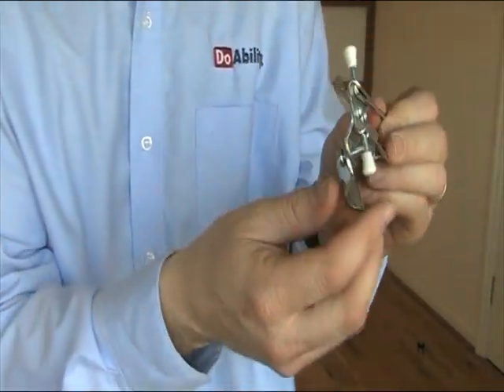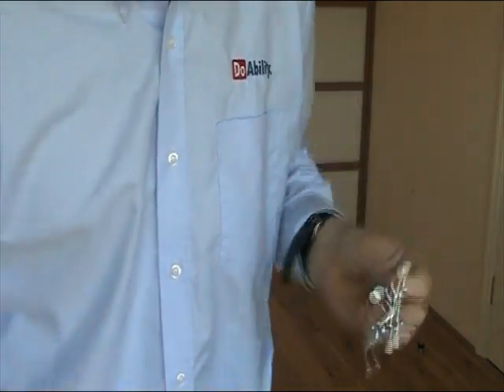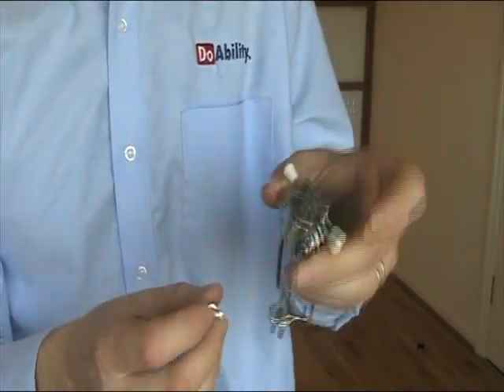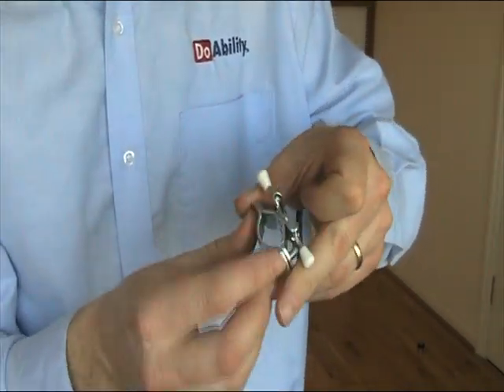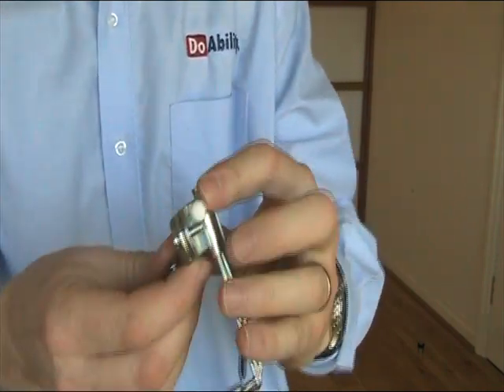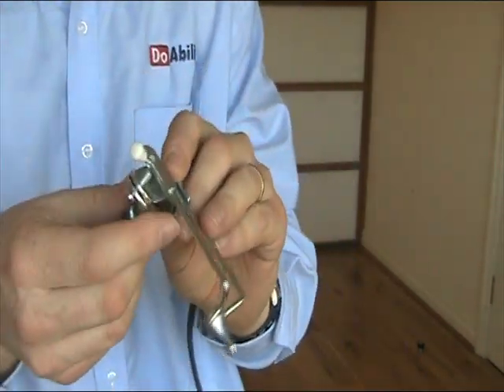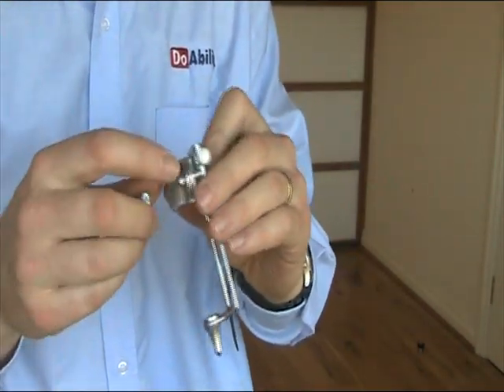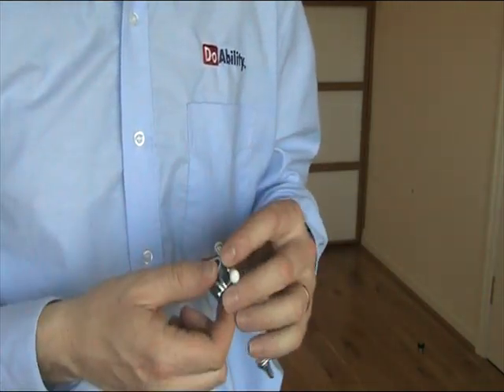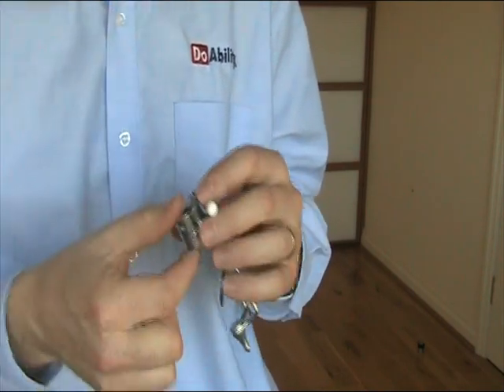You can see how I've loosened the nut and screw — the screw goes in to fix it in place on the crutch or cane. It's got quite a lot of adjustment, so it can fit reasonably larger standard cane holders — canes and crutches — the diameter of the tubing it should fit.